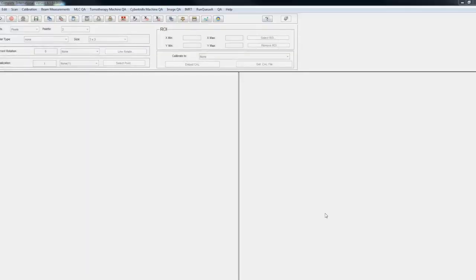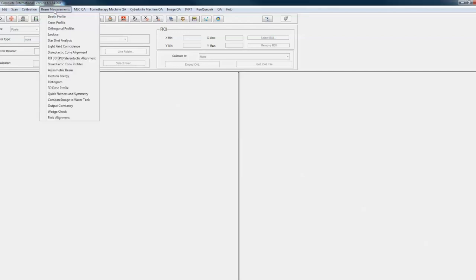Hello, what I'd like to show you today is how to do a radiation light field coincidence measurement. If we go under the beam measurements pull-down menu, we can see that we have light field coincidence here, and that's the routine we're going to use.